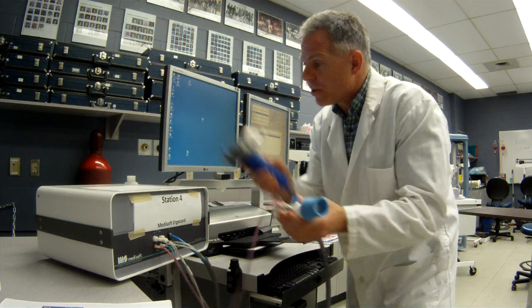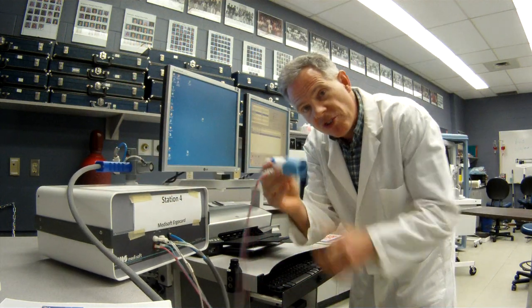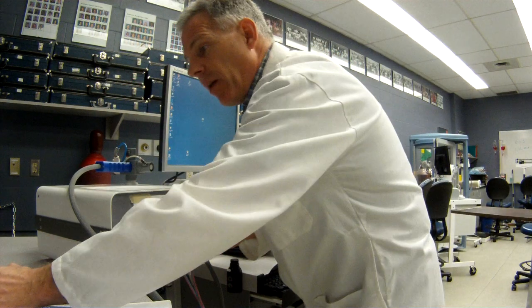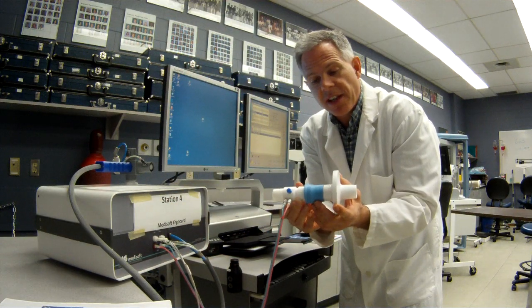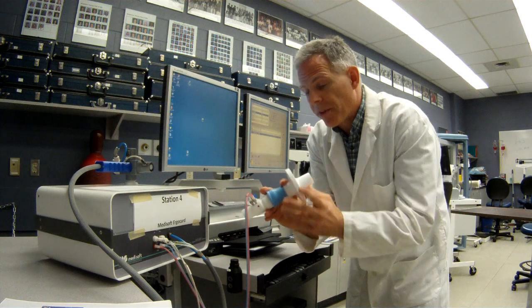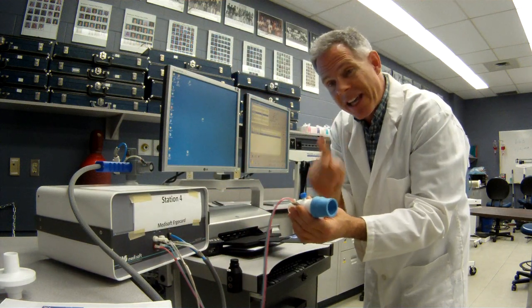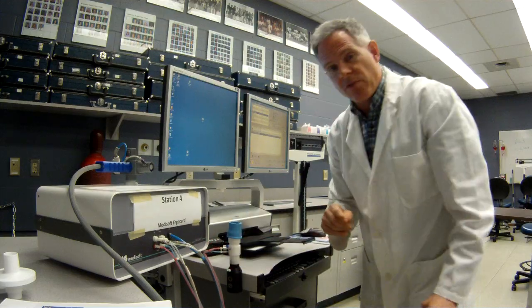But for basic spirometry, we don't need to use that unit. We just need to use this, and we hook this up to our patient filter just like that. And they can hold this and breathe through that to get their pulmonary function tests. So now I'm going to show you how we would actually calibrate this device right here.